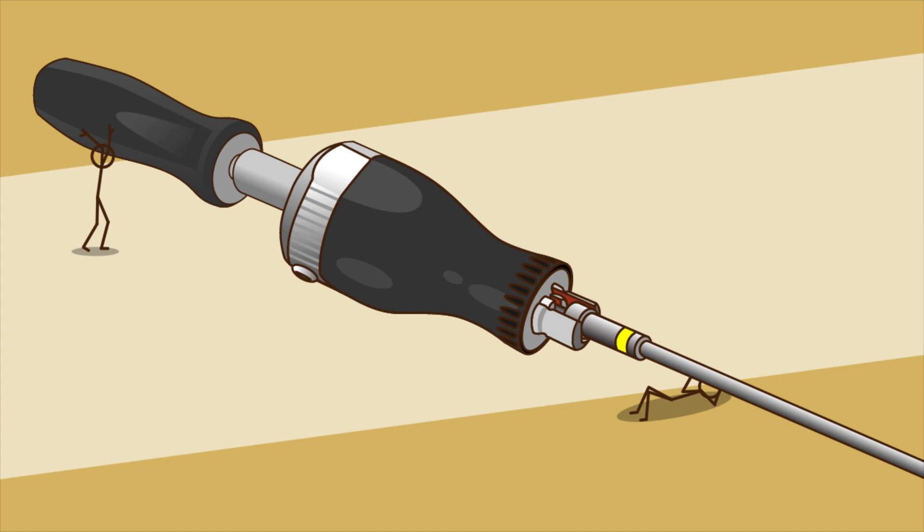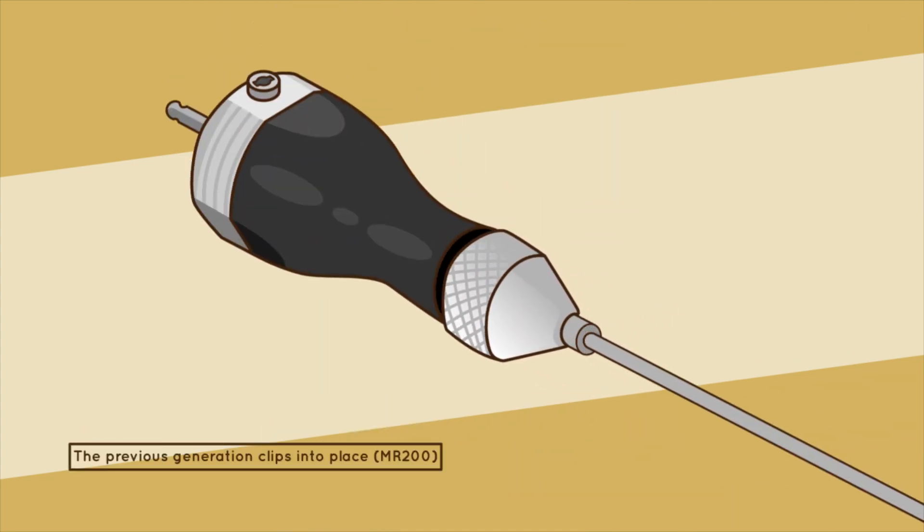Step 3. Insert the shaft and tube assembly into the handle by lining up the flat surfaces. Disengage torque handle from male retriever assembly to prevent inadvertent deformation of the single-use shaft. Attach the cap by threading it into place.